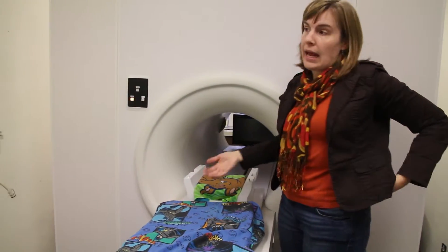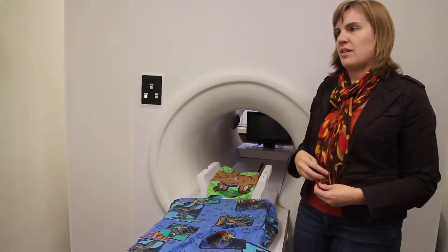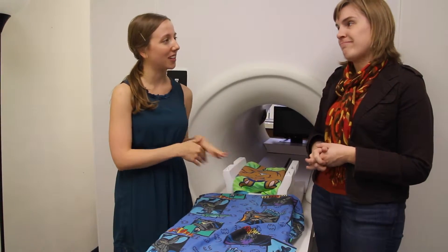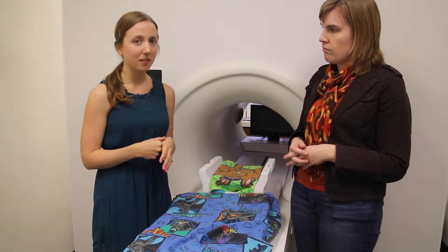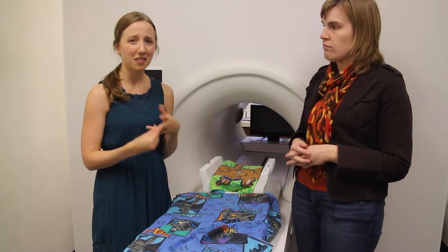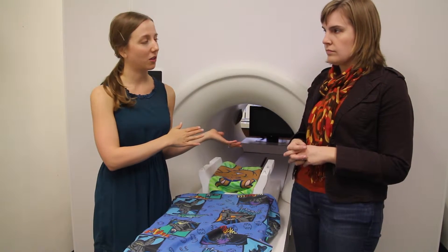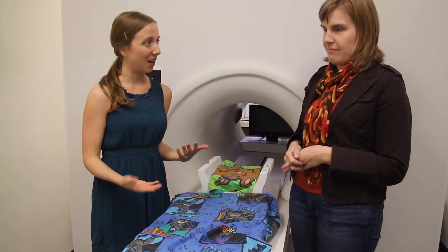One of the common reasons why people can't get MRIs, especially little kids — what are the things that tell you maybe this kid isn't quite ready? One of the biggest things is just that kids are uncomfortable. Sometimes you can tell they're anxious about getting inside the practice MRI, and we never want to make anyone uncomfortable, so if they don't like the practice one, that's a big reason for not having them come back. Some things that tend to make kids uncomfortable are mostly the sounds. The MRI machine makes really loud sounds, surprising if they're not used to them, so we play the sounds for them and send everyone home with a CD so they have more chances to listen and get acclimated with no surprises.